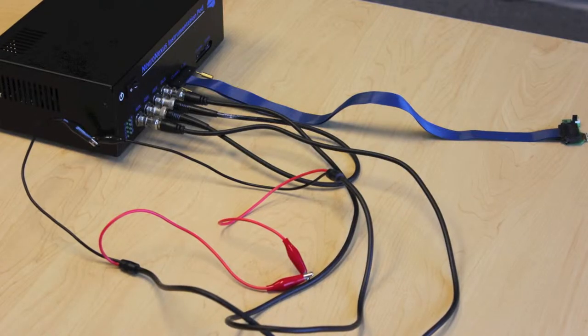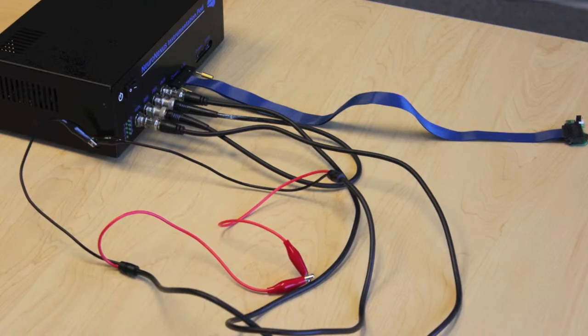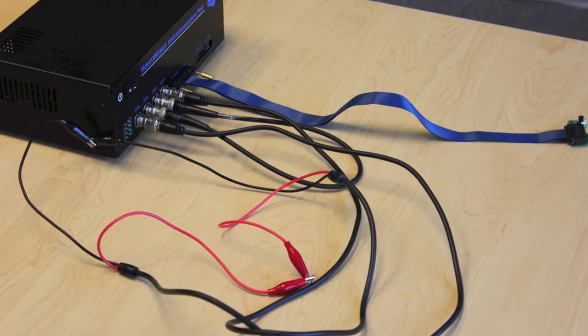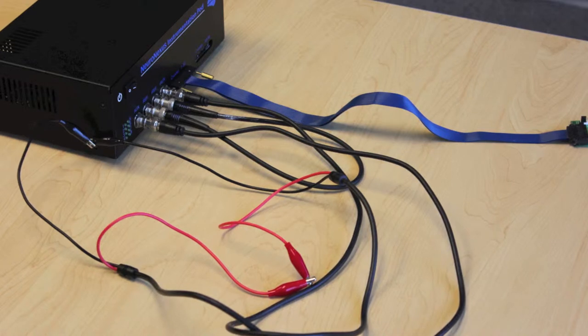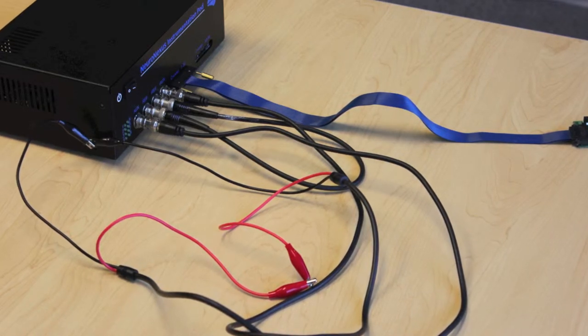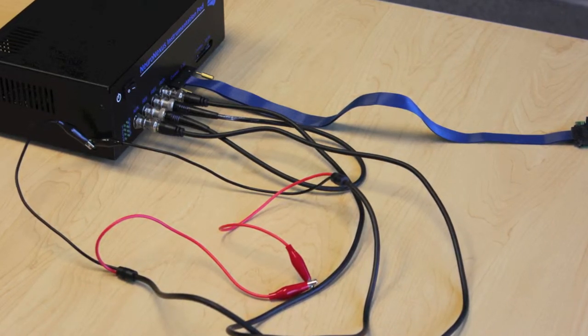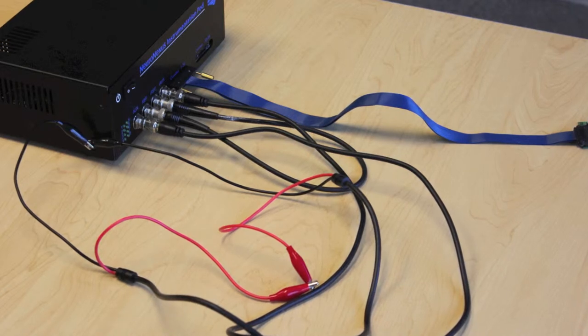The correct connections when you're done should look something like this. And you are now ready to use the Nipod for making in vivo measurements. The software, which we will demonstrate next, operates the same as it would for an in vitro or dummy measurement.